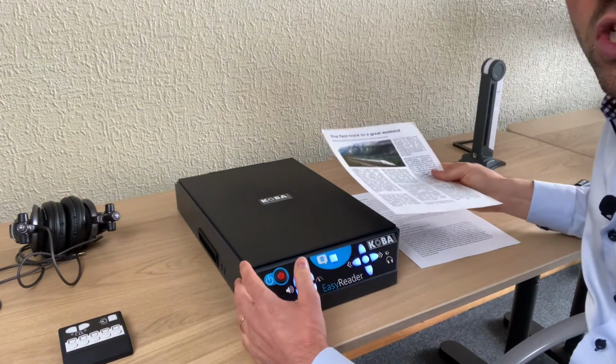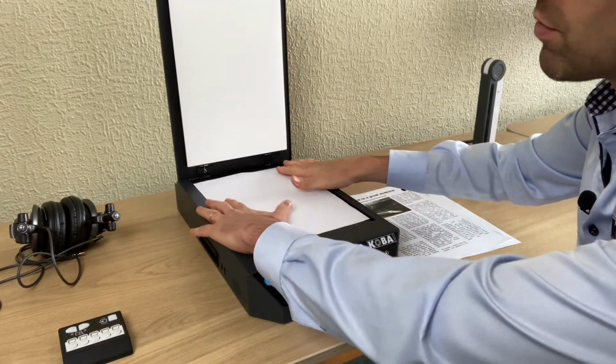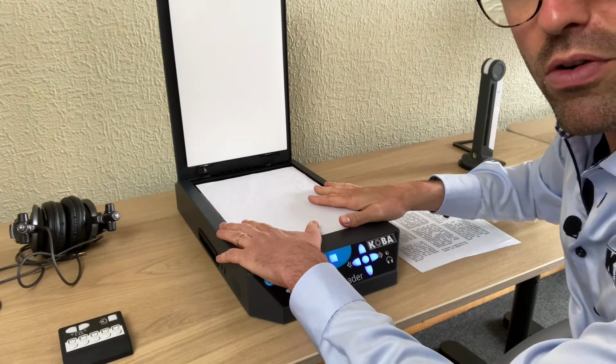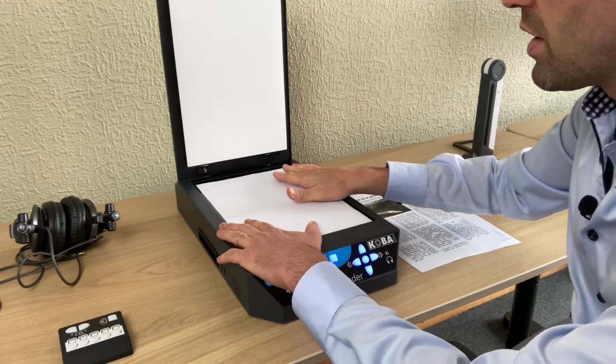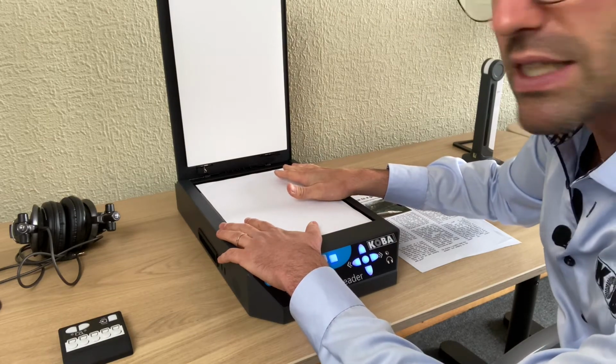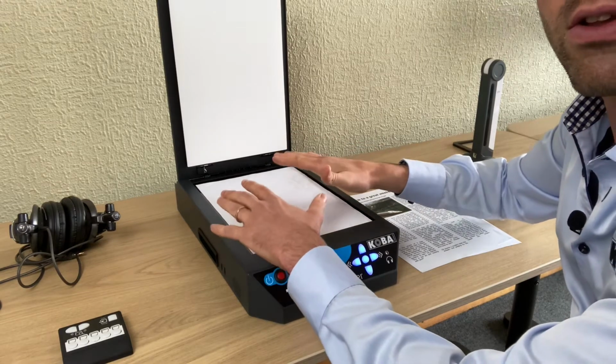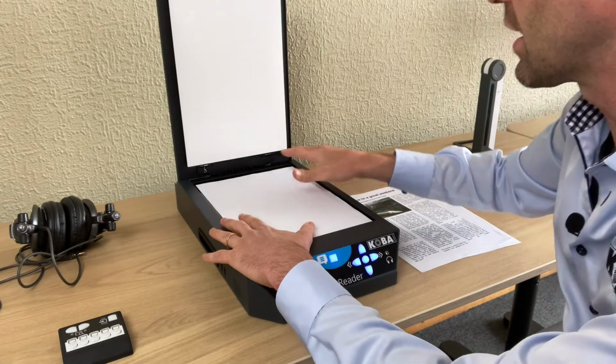The advantage of the machine is that it still has a scanner. So that does mean that it is easy to feel where to put your page, of course. And also you don't have problems with light conditions, shadows, thick books or things like that, because the paper is always flat and you always are sure that you have put the page correctly.